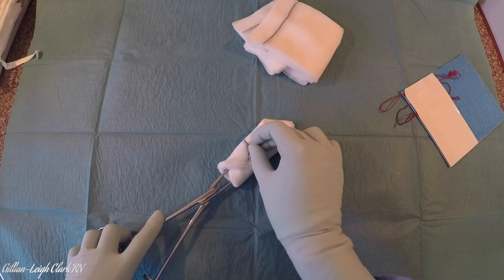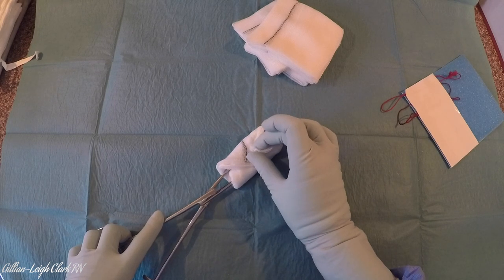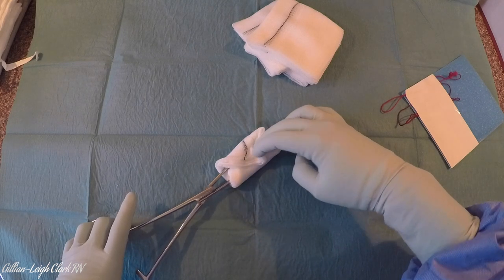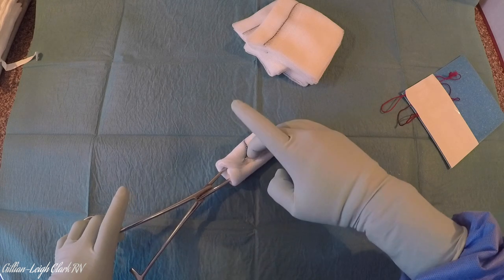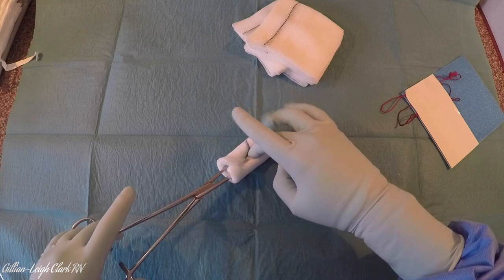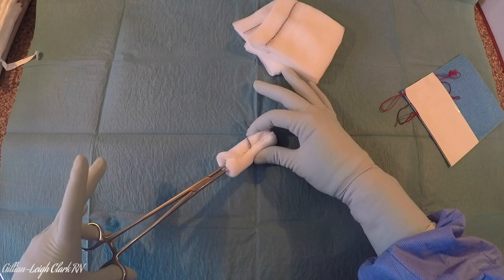I tend to swap and pop my thumb there just to hold it in. I'm going to catch this bit and bring it into the middle also. My instrument is still open, you'll see. I'm going to push them down into the middle and shut the instrument — without shutting my fingers in at the same time. As the instrument closes, you can extract your fingers and lock the ratchet.